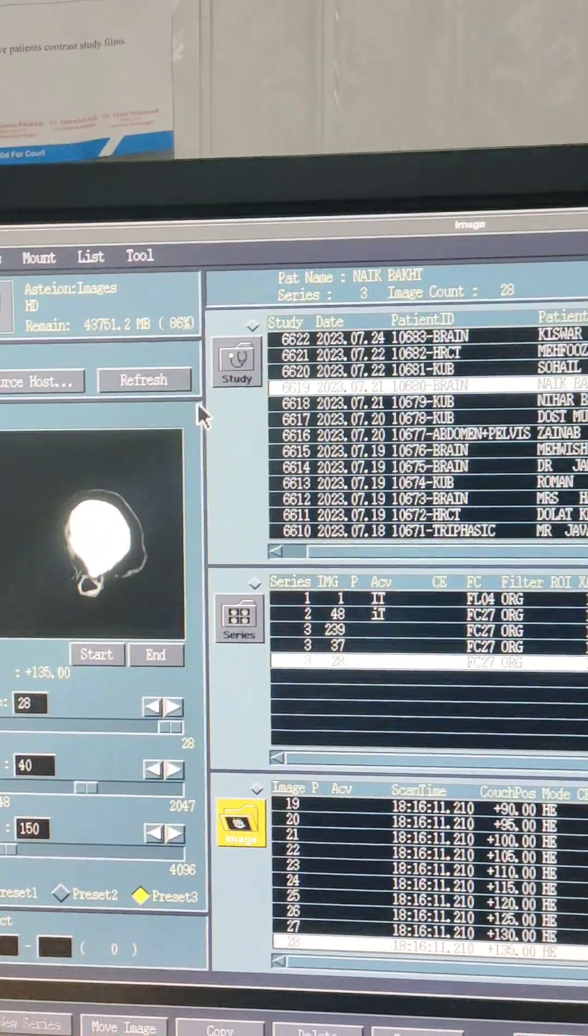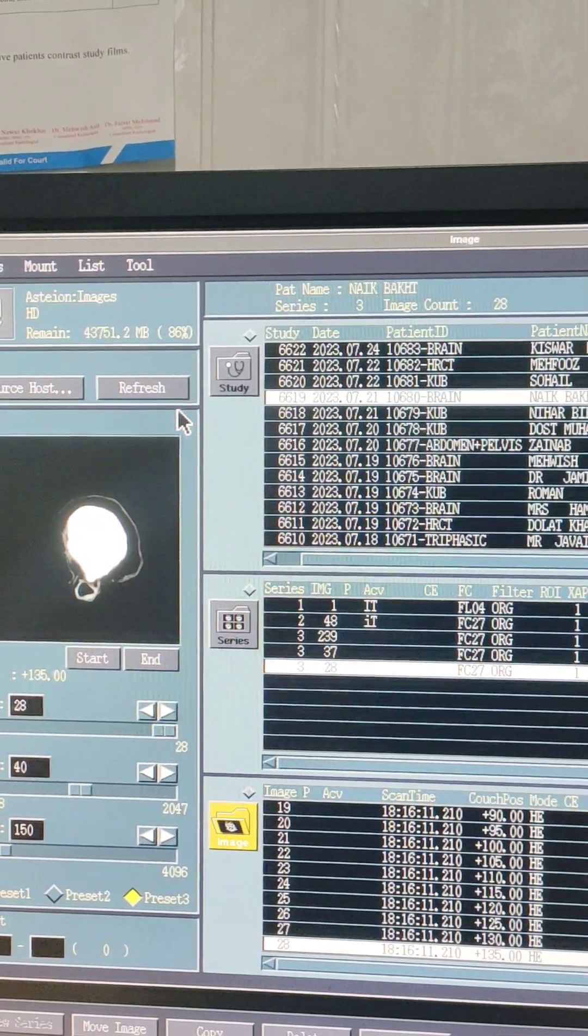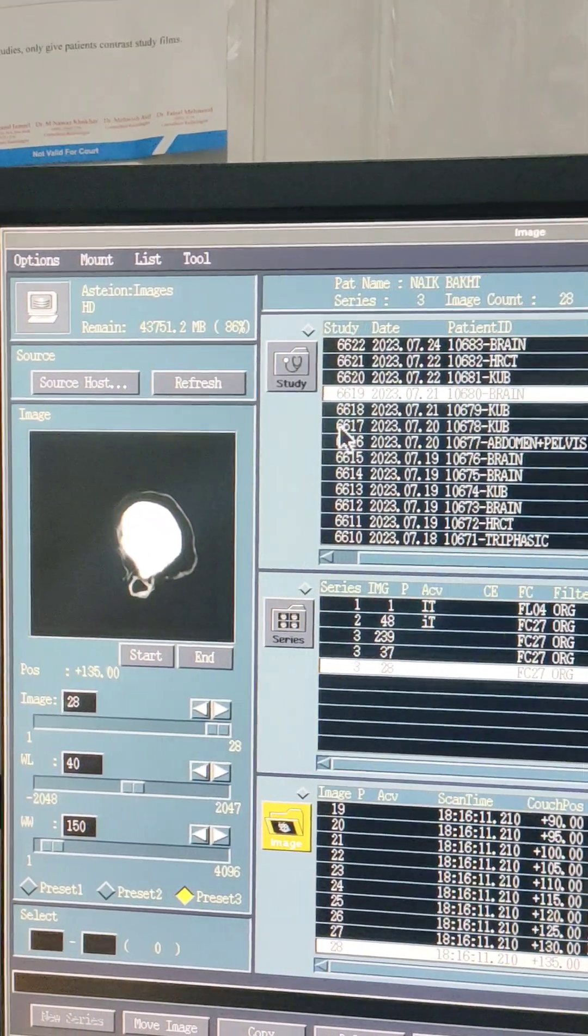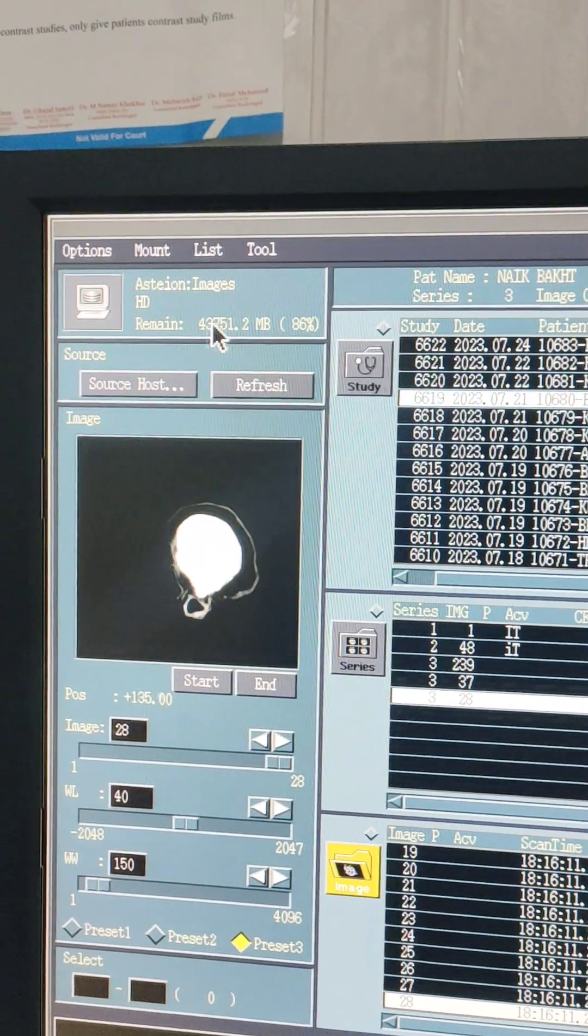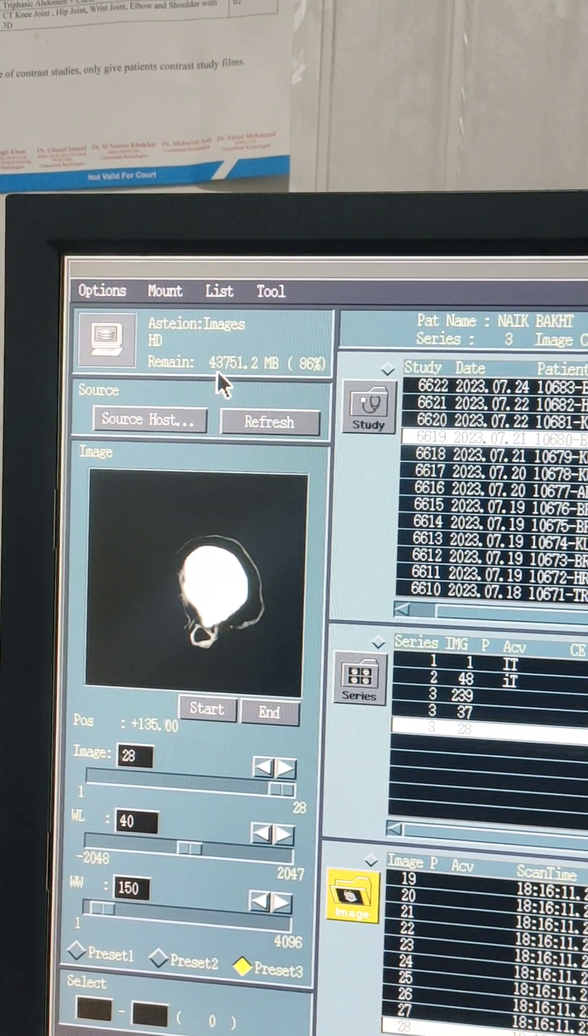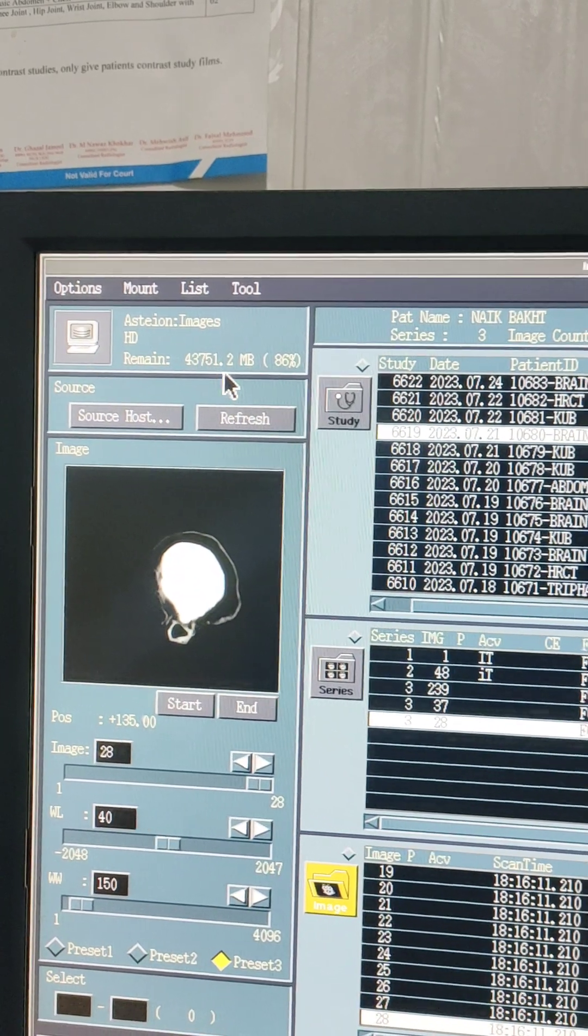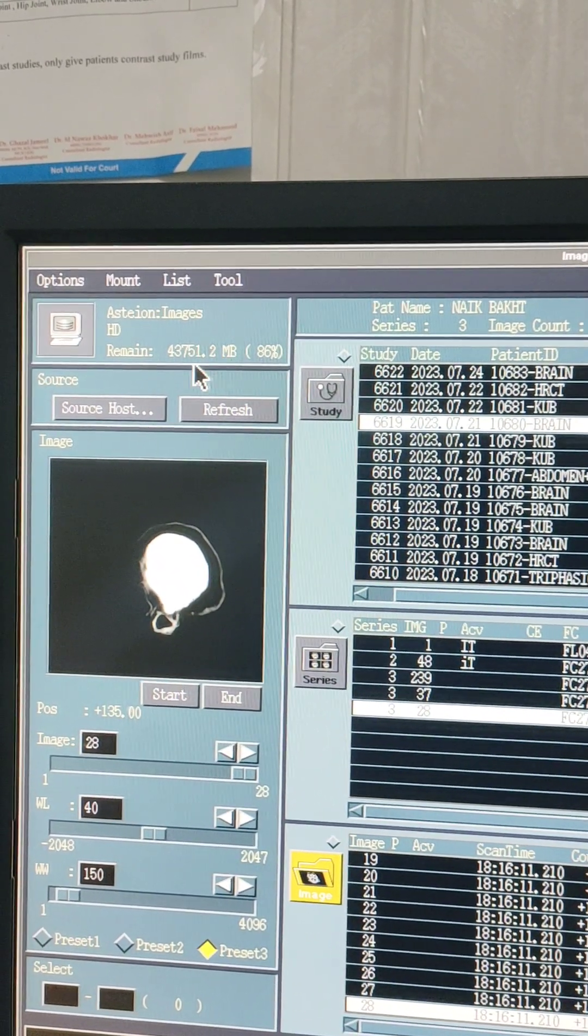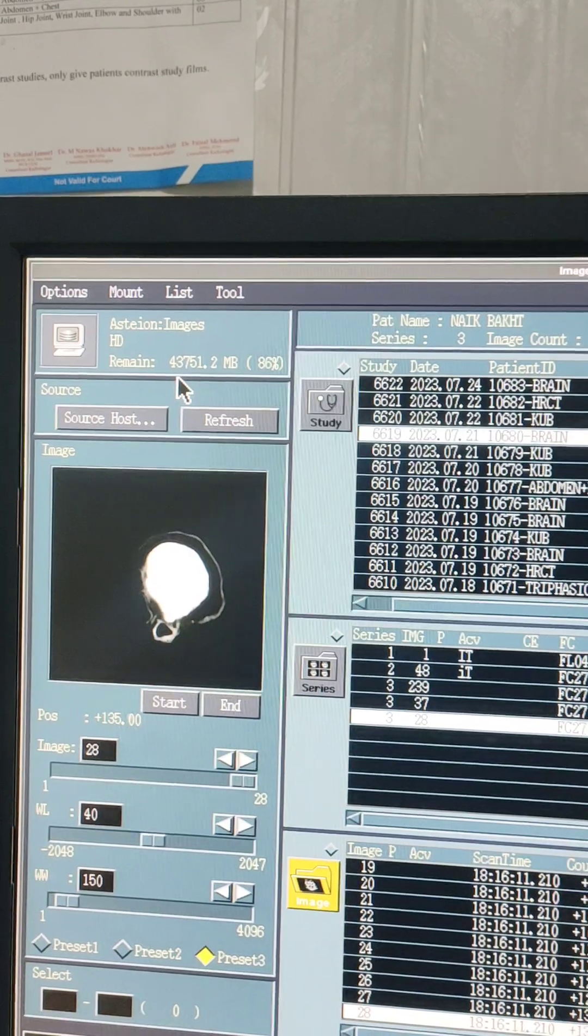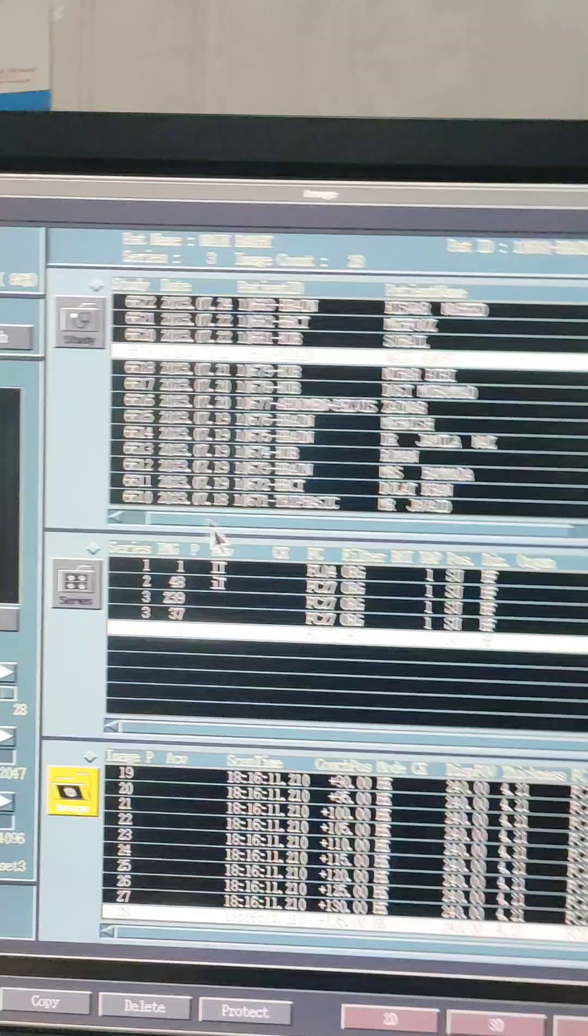If you want to clean your drive or make more drive space, first of all you can do that. You have the space of 43,751 MB in your drive - 44 GB you have in your drive free space.